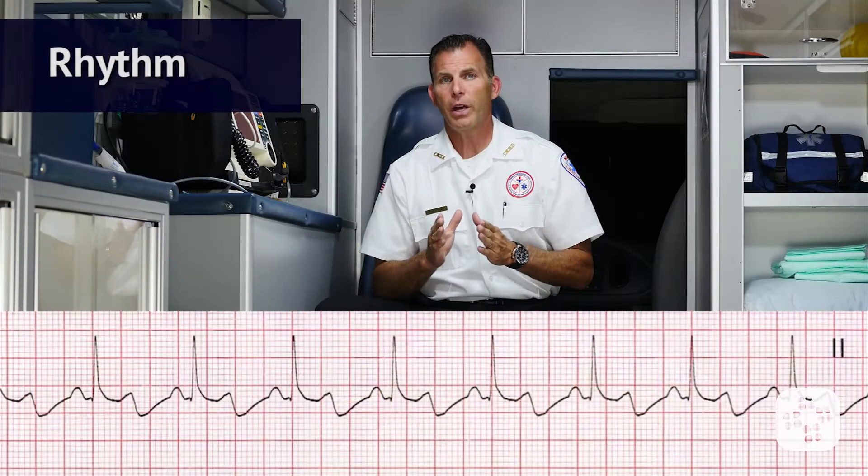It's always helpful to know what is abnormal by first understanding what is normal. This is why we're going to look more closely at the normal sinus rhythm ECG first, and pay special attention to its findings and measurements. Let's take a look at the rhythm now.